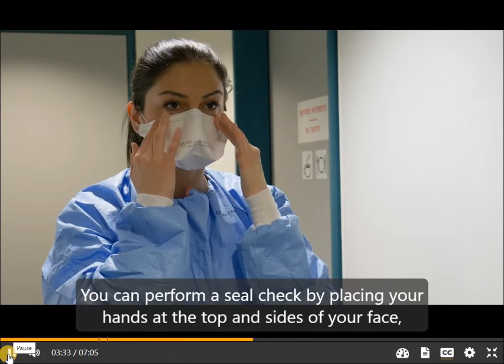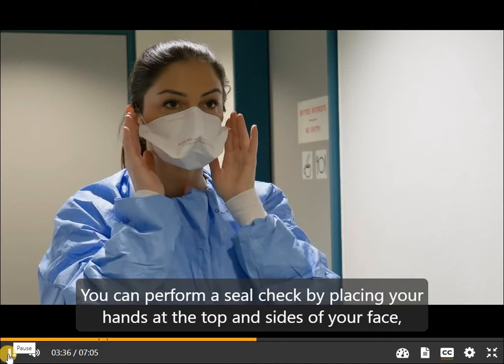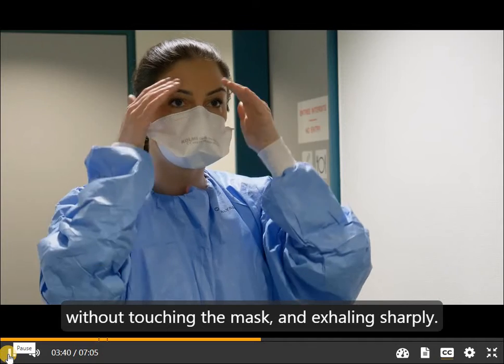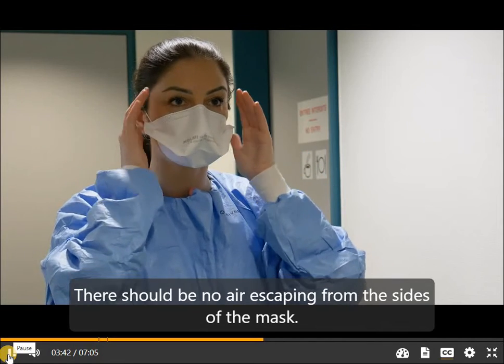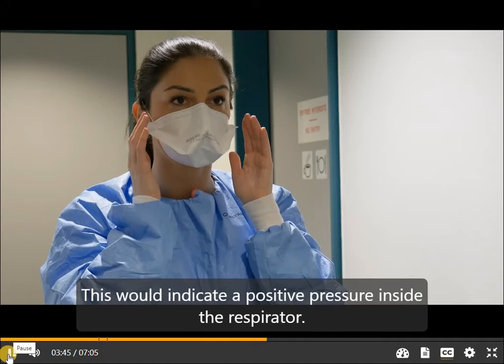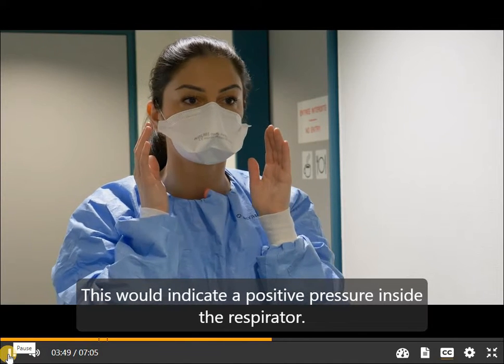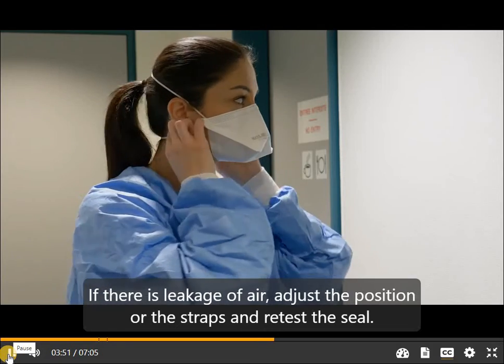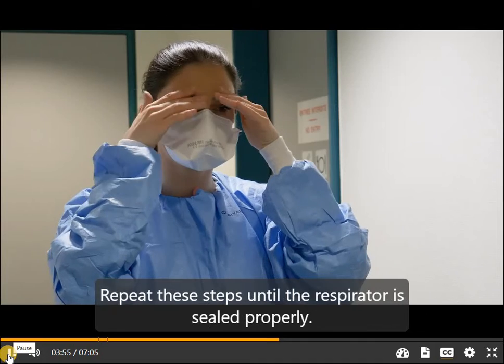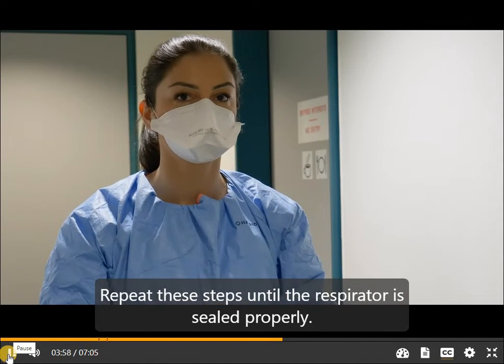Perform a seal check by placing your hands at the top and sides of your face without touching the mask and exhaling sharply. There should be no air escaping from the sides of the mask, which would indicate positive pressure inside the respirator. If there is leakage, adjust the position or the straps and retest the seal. Repeat these steps until the respirator is sealed properly.